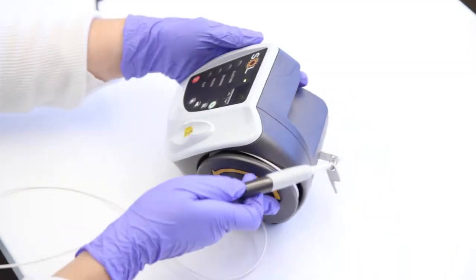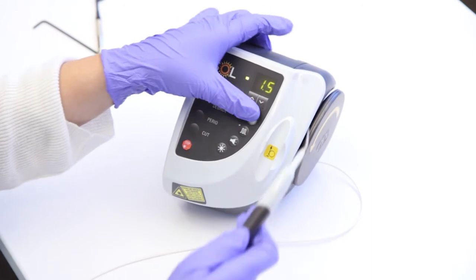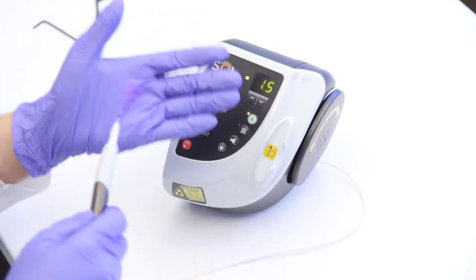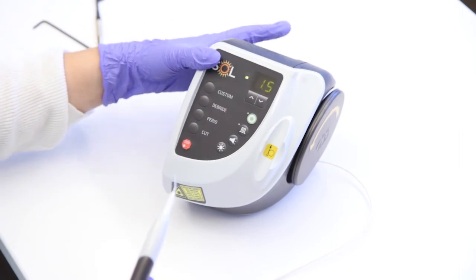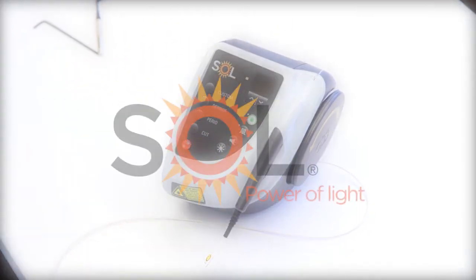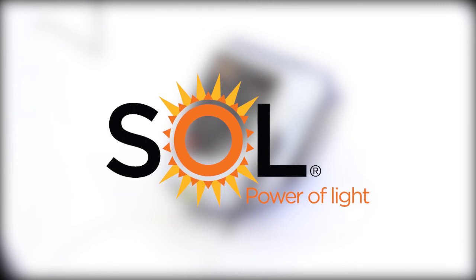Be sure to turn the laser on and test the unit to make sure it is working properly.